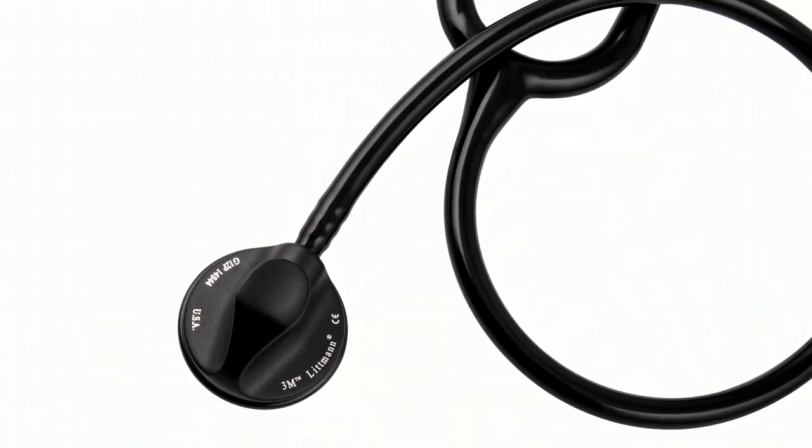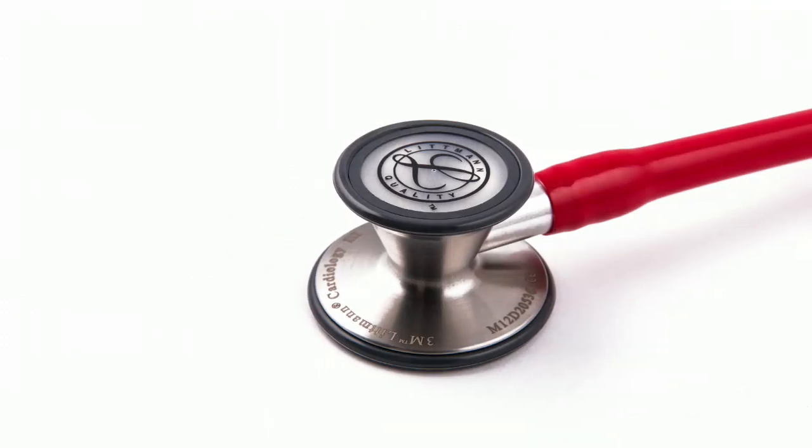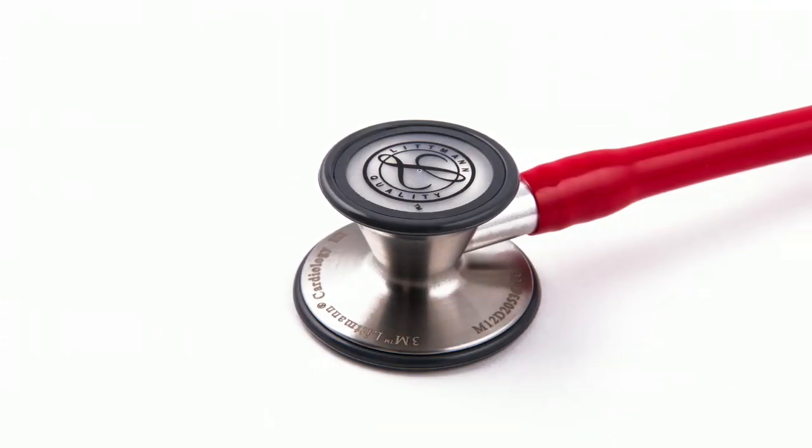3M Littman stethoscopes provide outstanding auscultation performance, quality, and durability.